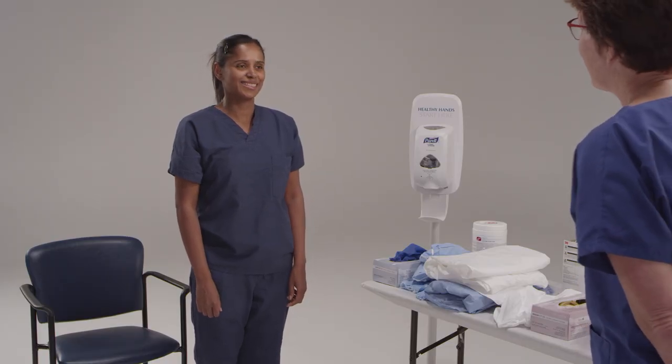Hi, welcome. We're ready to go see the patient. Are you ready? Well, great. We're going to go into the unit and we're going to do this safely. We're going to do everything slowly and methodically. And if you have any questions at all, you can stop and ask.